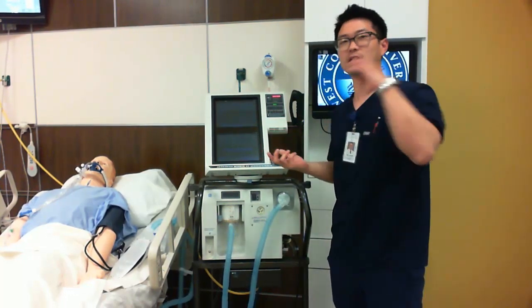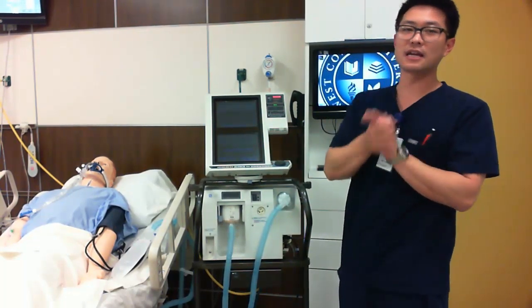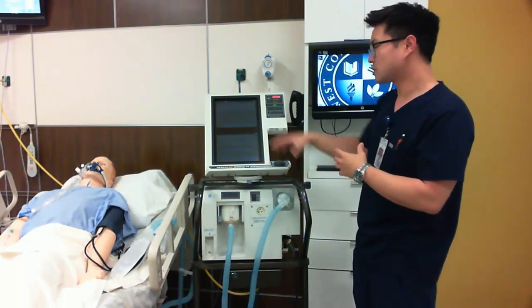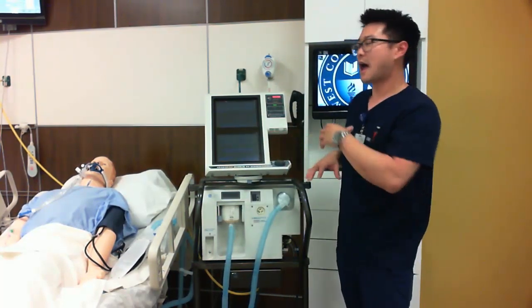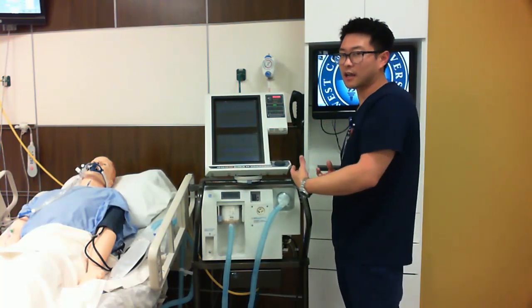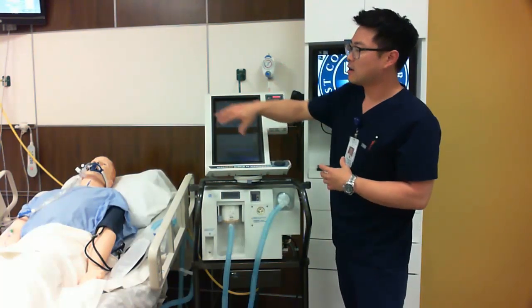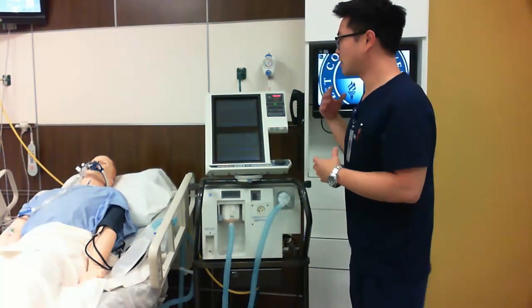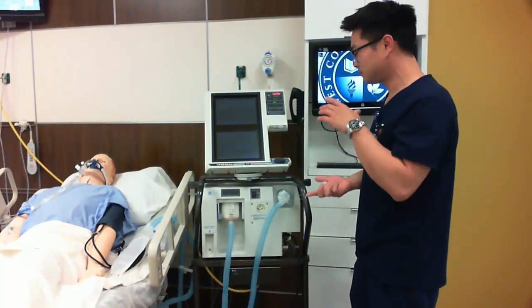Also, in theory courses you'll be going over the different settings for your ventilator and the different types of patients we might use for those. So this is just an overview of how we might take care of a patient and how we might use the ventilator or the suction setup. So just before we go any further, let's go ahead and talk about the ventilator.